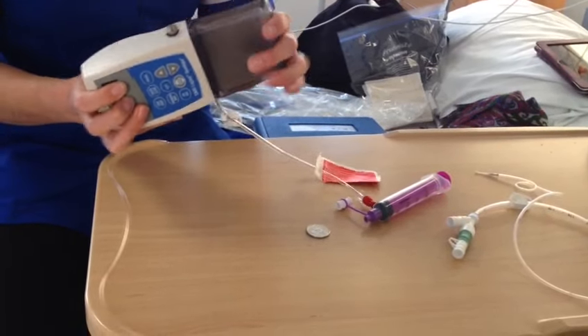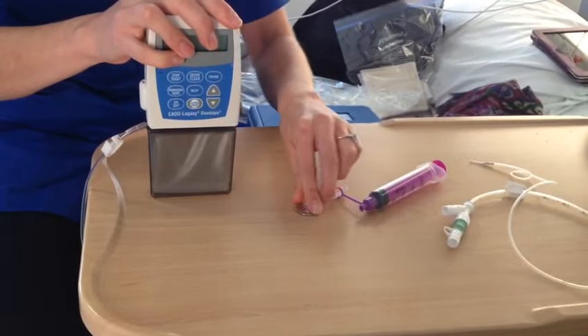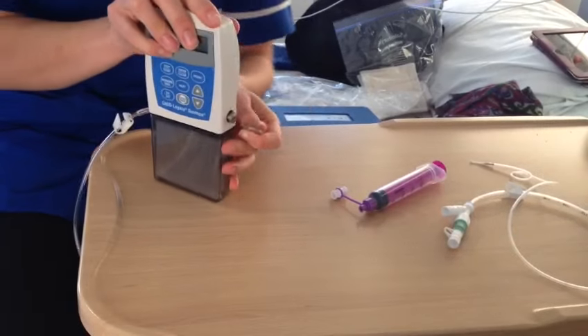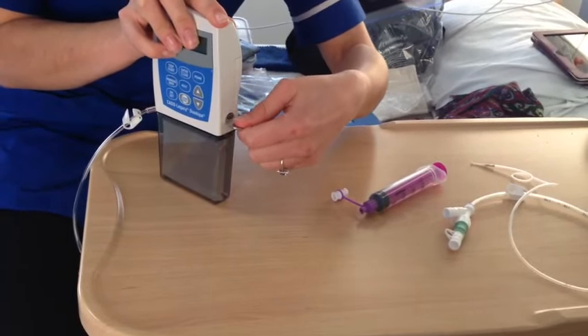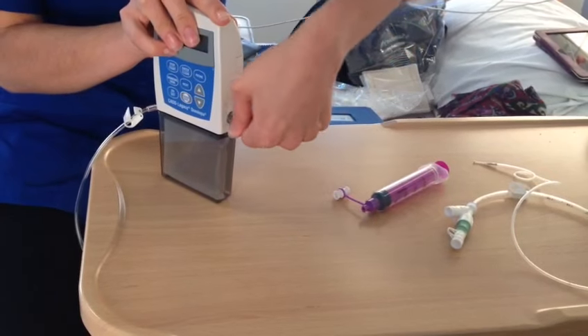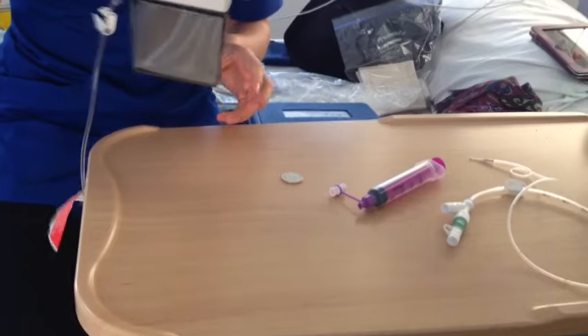This will still be wobbly. Then if you push it against a surface you can use a coin to lock it using the key. Slot it into the side, push it in and turn it, and when you've done that the cassette will stay in the bottom.